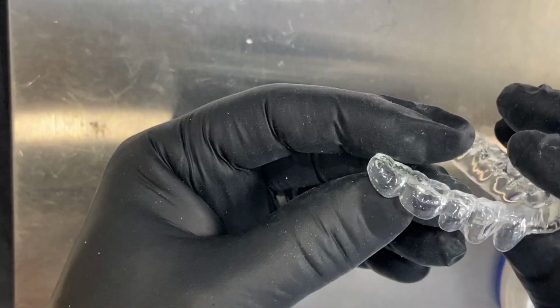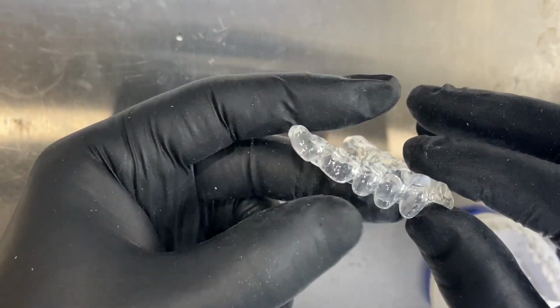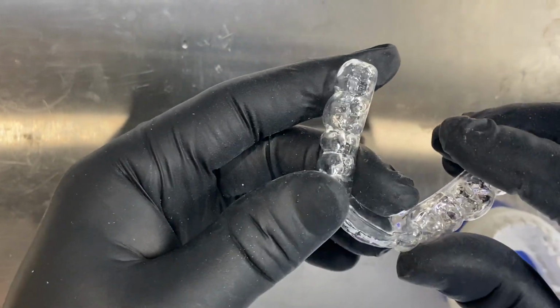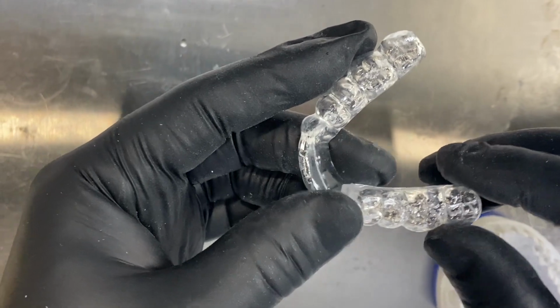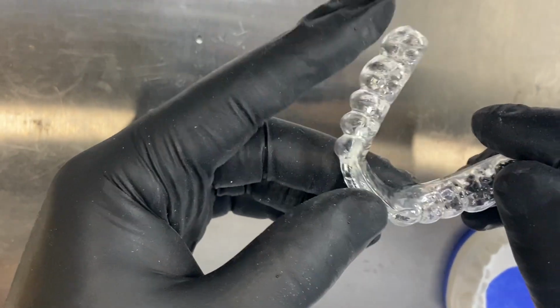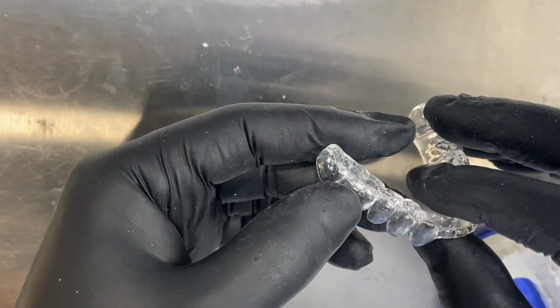So the main property of the PMMA, the acrylic one, is that you can reline it. For that one, you need to count on still having some thickness, because the manufacturer says that we can have 80 megapascals of strength if we have 2 millimeters. As in many courses we take, the indication is that we should take the bite registrations at the minimal spot at about 2 millimeters.